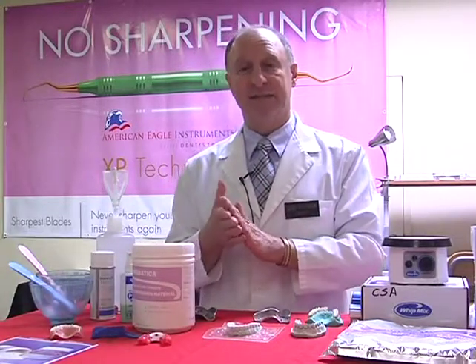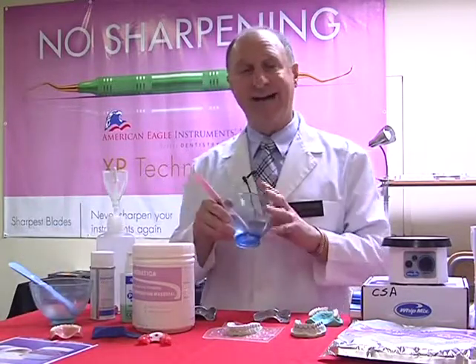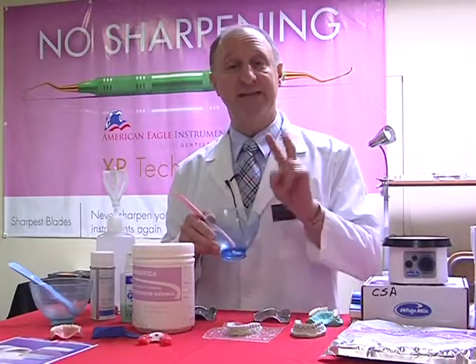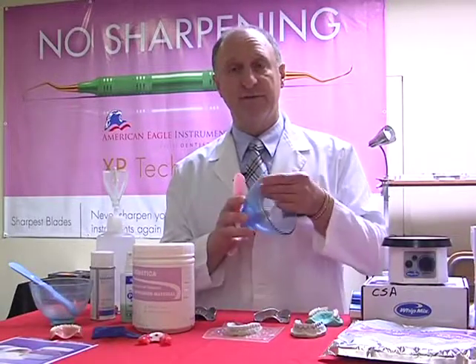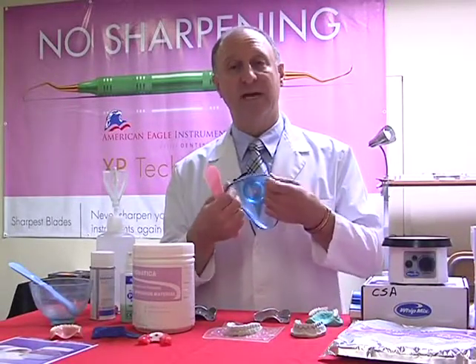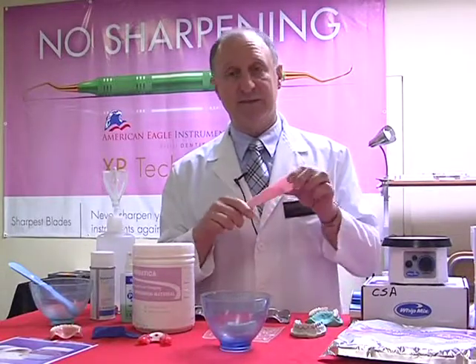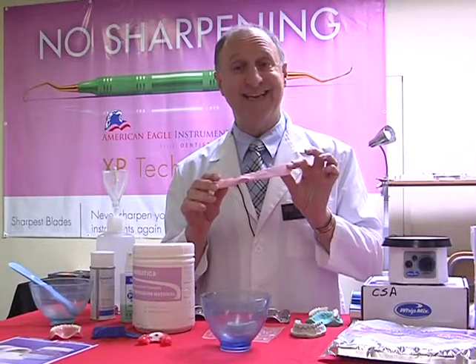So, handling ability. Always try to make sure that when we're working, we keep our alginate bowl separate from our stone bowl. That means we need to have 2 different styles of bowls. In this case, I'm working with a very thin, flexible type of bowl material. And the same thing for our spatulas. Our spatulas themselves are very flexible, and these are a nylon-based material which can be heat sterilized.